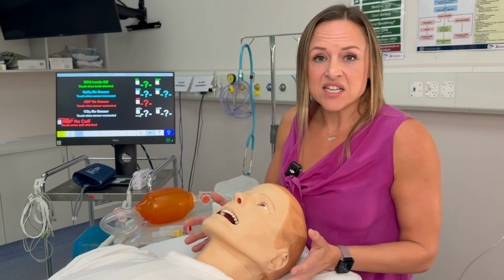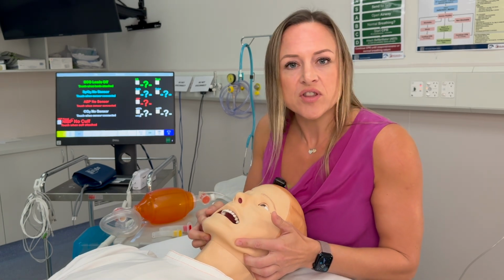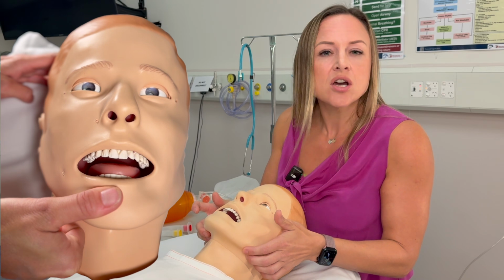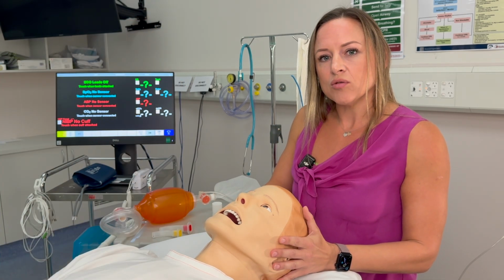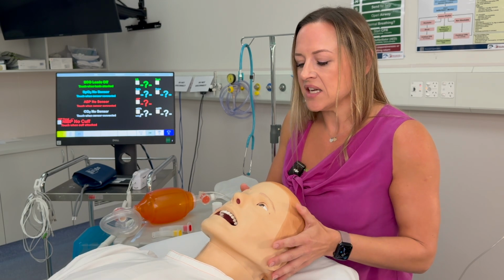We can create laryngospasm, pharyngeal obstruction. We can make the tongue swell, which you'll be able to see when you open the mouth and visualize the swelling of the tongue in the airway. We can add trismus, which is demonstrated by Frank's tightening of his jaw. And we can also decrease the range of cervical motion, which you'll see some flexion of Frank's head as he becomes more rigid and difficult to intubate.